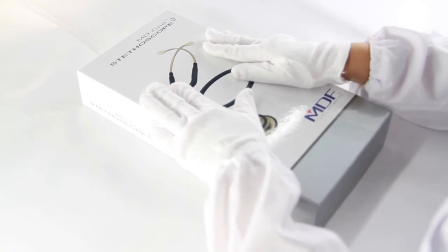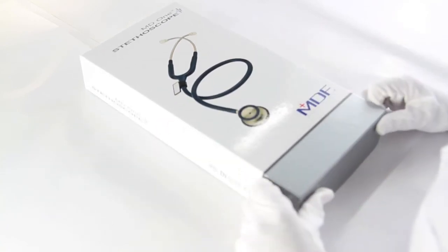And yes, that's a lifetime warranty on the entire stethoscope, even on the tube. And the same goes for all MDF stethoscopes. That's handcrafted, lifetime warranty, and free parts for life.